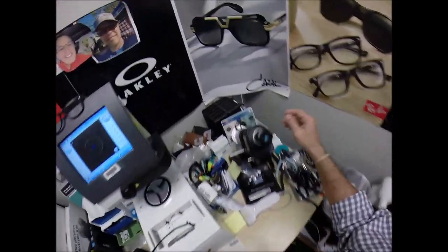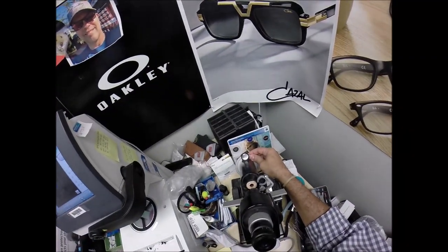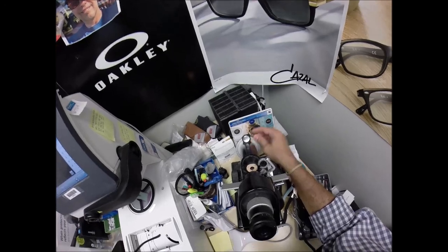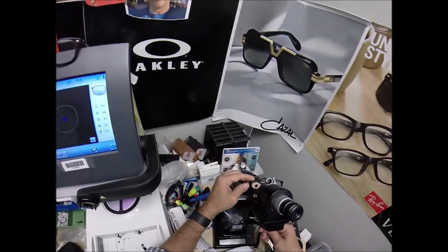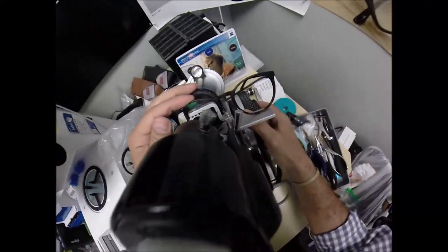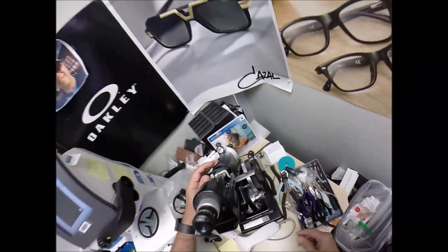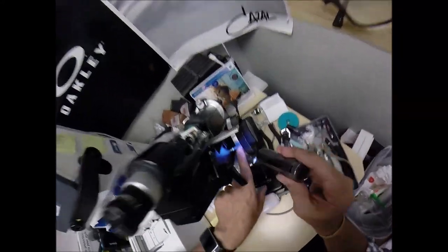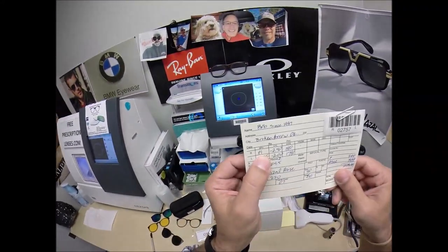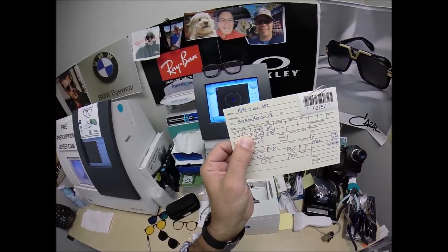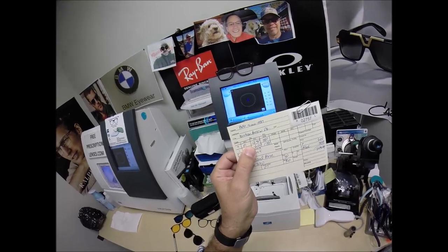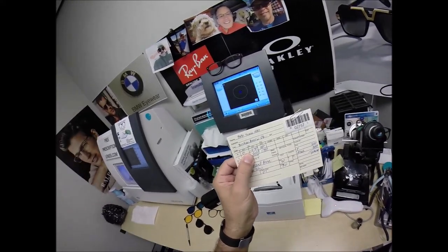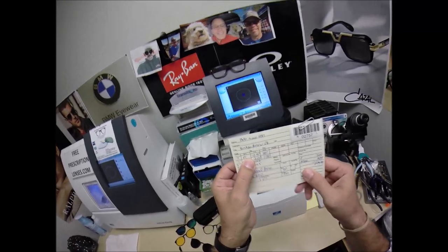So, we're going to come down here to the lensometer, spin the axis wheel back to 180, which again will be played by the part of zero tonight. Put it in over that black dot. And I am getting a million. No, I'm getting, where's, that's what I'm looking for. I'm getting zero, Plano. PL, the abbreviation for Plano, which is a city in Texas, but we in the optical world use that as denomination for zero.